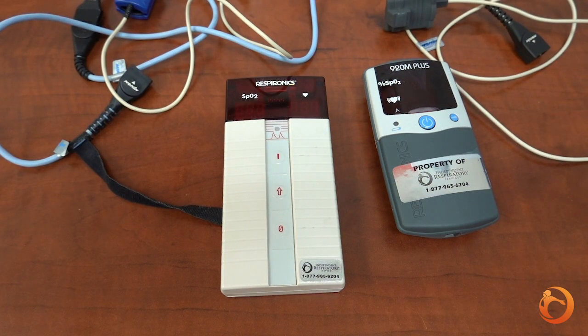These devices are provided to you by your sleep clinician. They operate on AA batteries, either rechargeable or non-rechargeable.